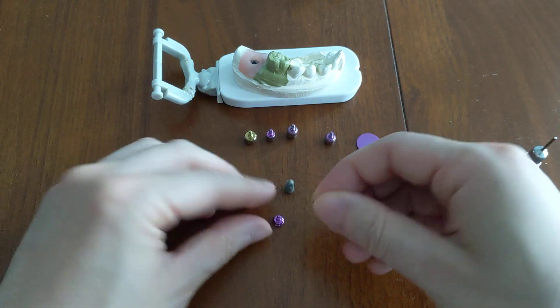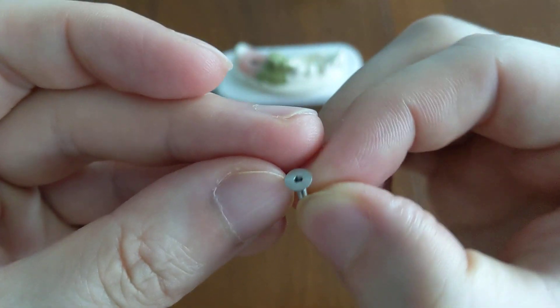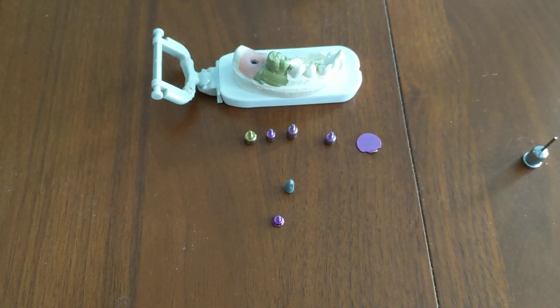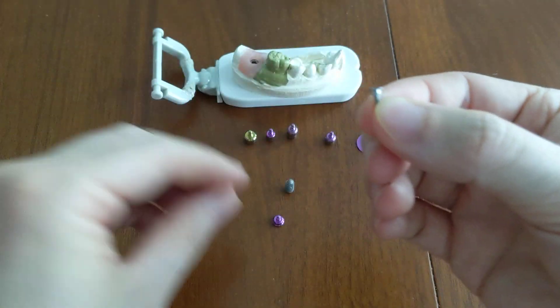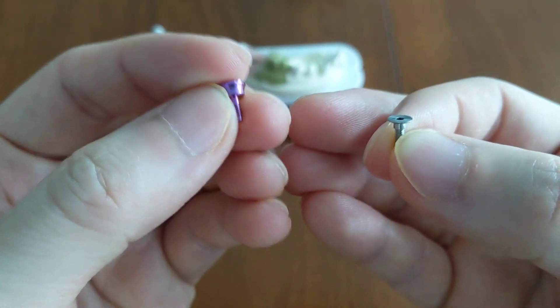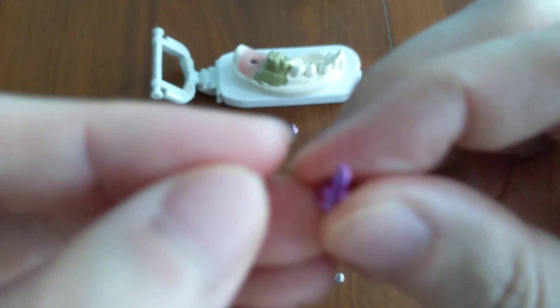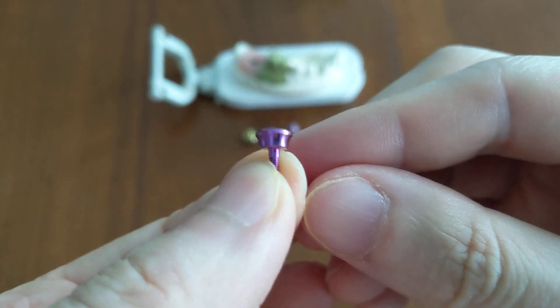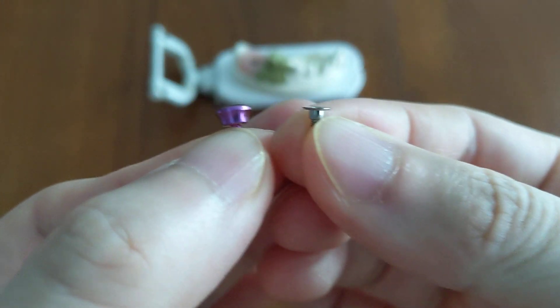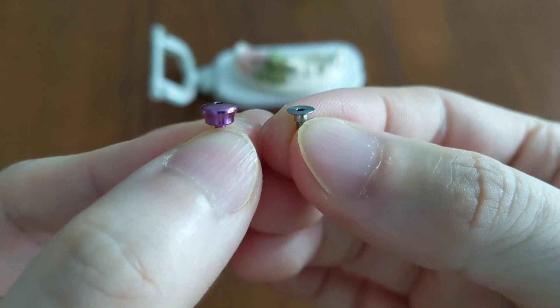The one on the right is a cover screw. I'll hold it up and twist it around so you can see from different angles — it literally looks like a screw. Compare that to a healing abutment, also called a healing cap or healing abutment screw. It's a similar screw shape, but if you put the two side by side, the healing abutment is significantly larger than the cover screw.